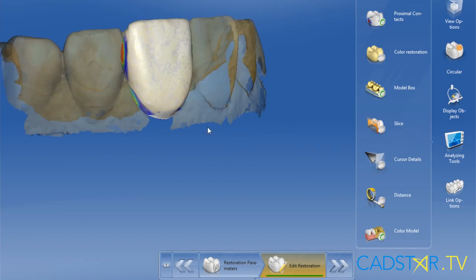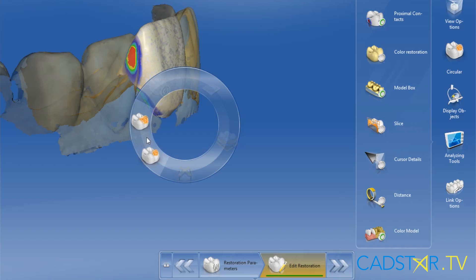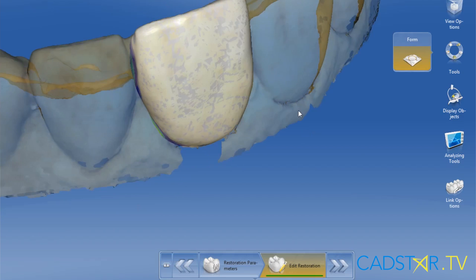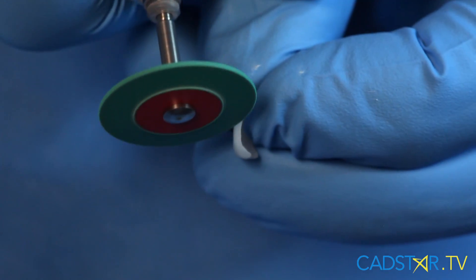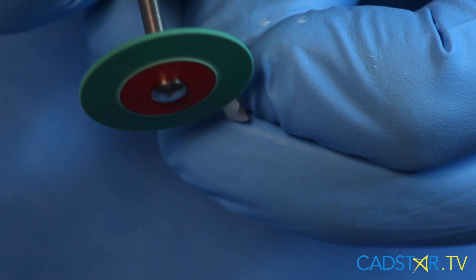The two primary tools I use with biocopy when working on anterior teeth would be the form tool — that's the smooth, the removal, and the add — and also the shape circular two-directional tool. That's where I define the proximal contacts, toggling between the form and the shape tool. I will add enough bulk at the margin to make sure I get a good mill, particularly if I'm using a feather or a light chamfer margin. Within the CEREC system, we can provide excellent feather margins, meaning we can create even no-prep veneers. It's never been better with CEREC 4.0 and the OmniCam.